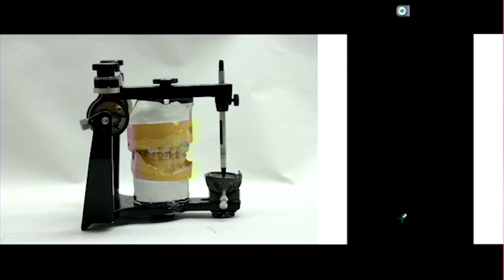We can write them down as I say them, or somebody can type up a slide and send it out. Yes, that's something you can't do on yours, which is a semi-adjustable. The fully adjustable, you can.